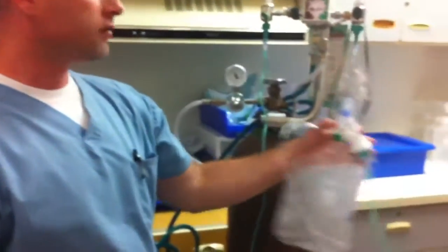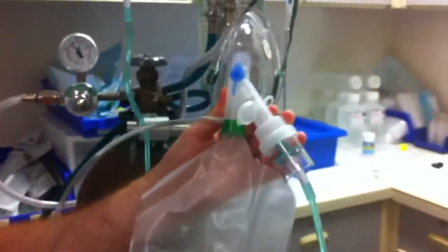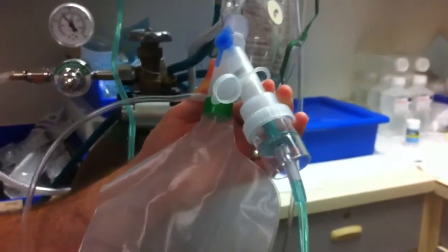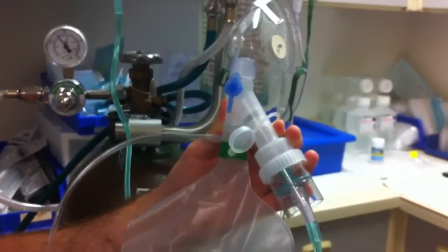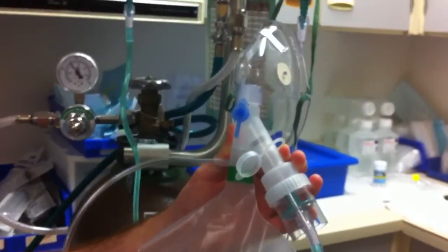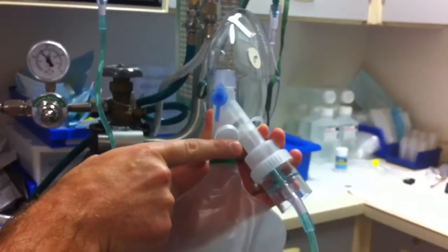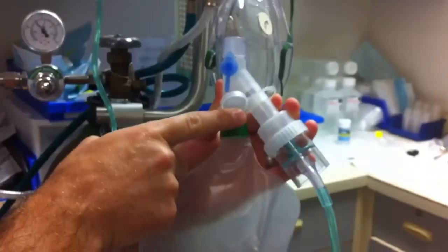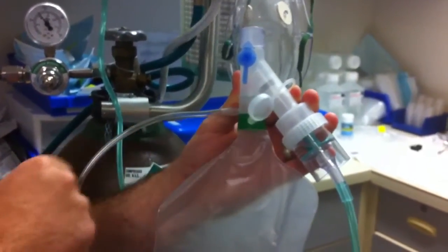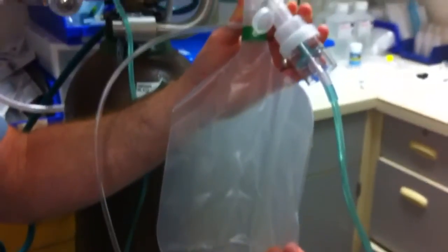What we use here at our facility is the NebuMask. The NebuMask incorporates a non-rebreather type, and this is from Hudson RCI. It also gives you the option on the side port to administer a nebulizer treatment, which is very nice because we're doing two things at once and don't have to makeshift a device.